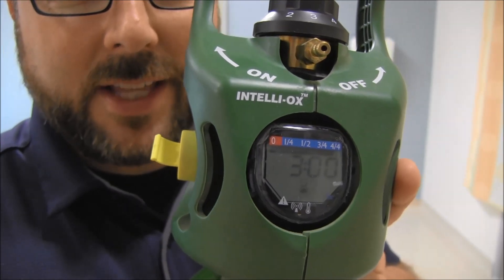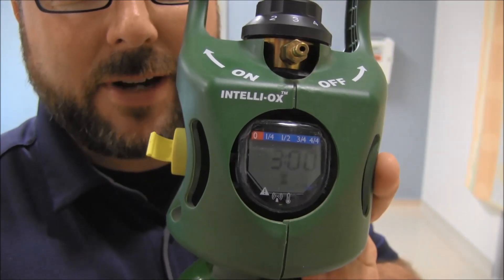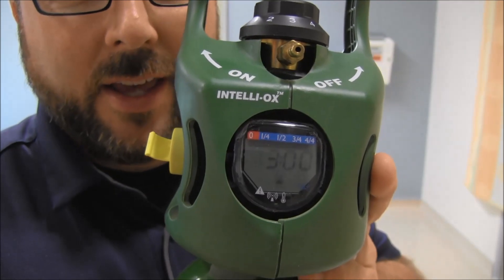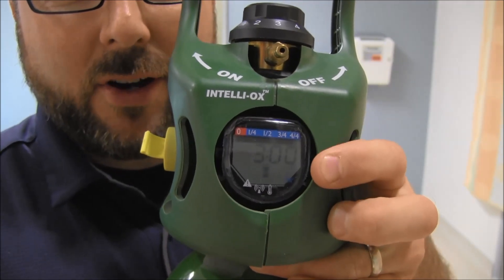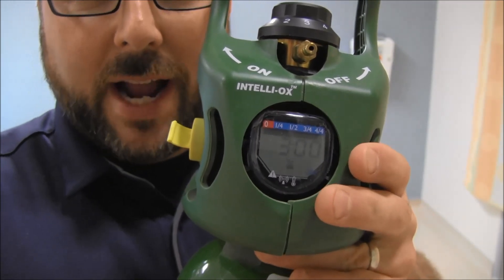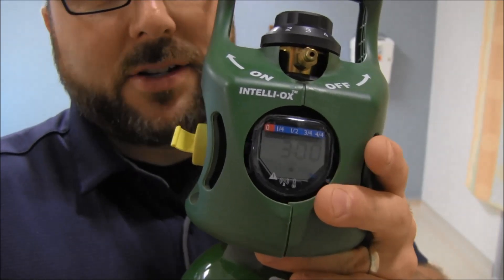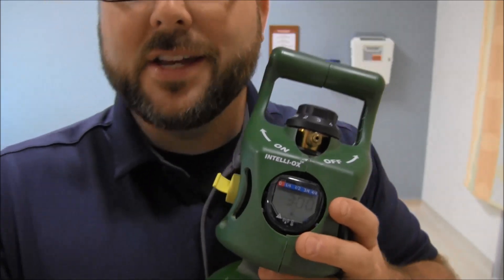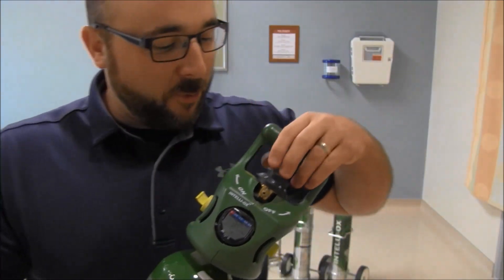On three liters you see 3.00 — that's three hours! And there's actually a countdown going on right now. So we have three hours remaining. That's awesome because there's none of that mental calculation anymore.